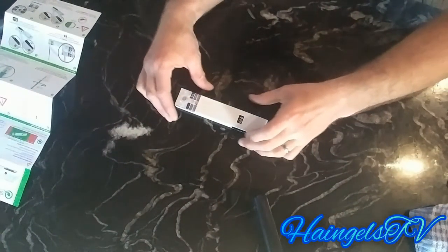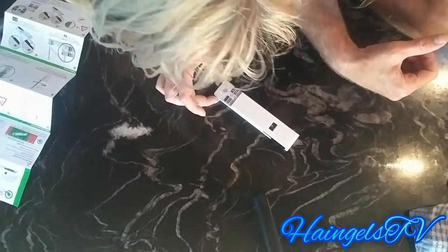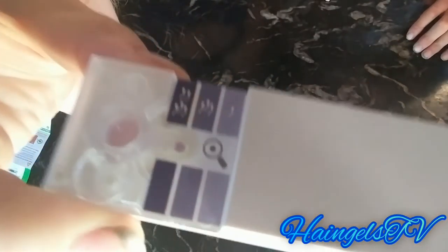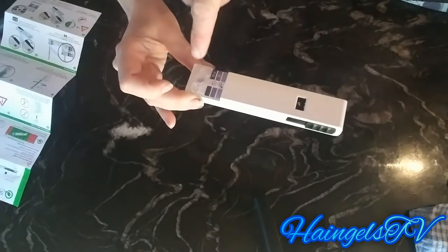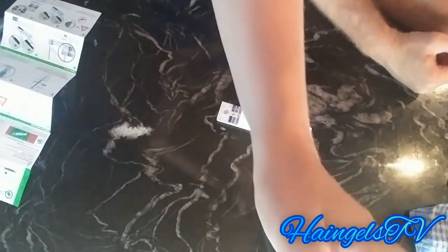30 minutes later — we're gonna pull the slider and see what color it is. It's looking pretty good, yeah, that's as dark as dark can get. It was looking pretty scary when it was in there. That had my heart going. Who cares about the volume — my swimmers have got to be fast. Cool, that's a cool test thing. Awesome.